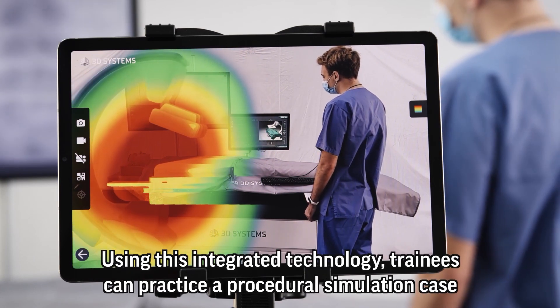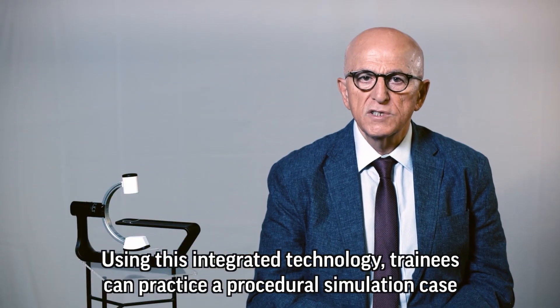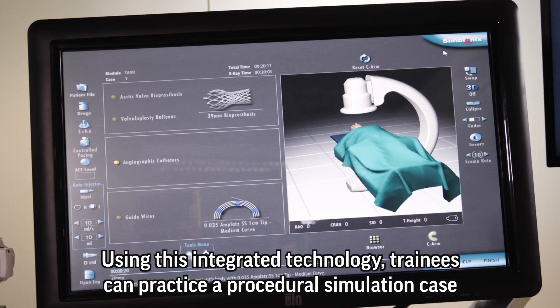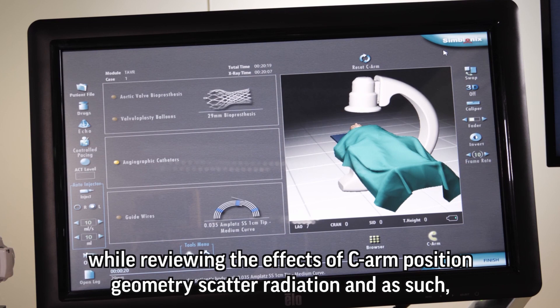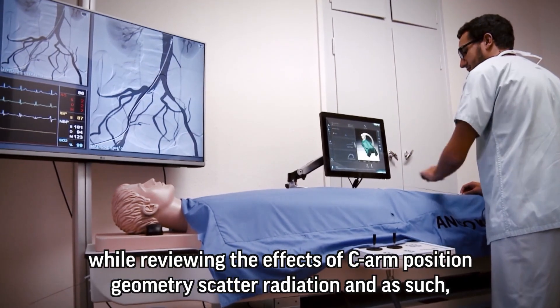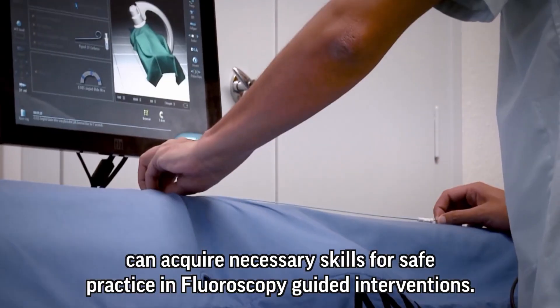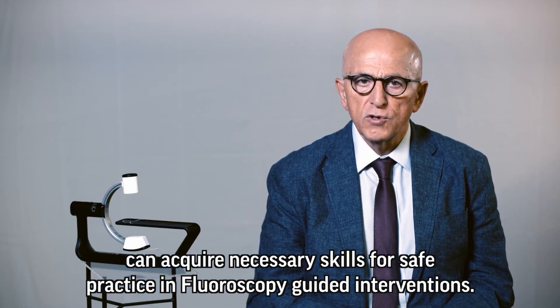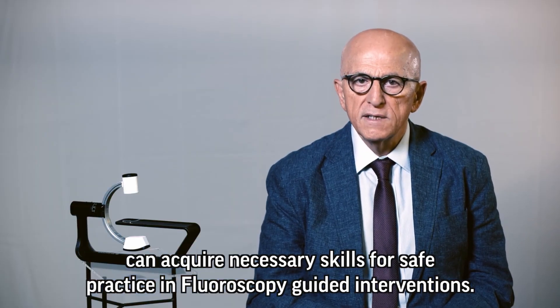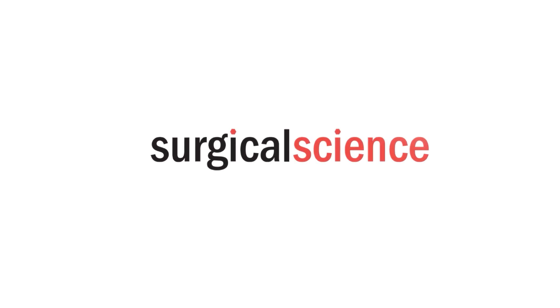Using the integrated technology, trainees can practice a procedural simulation case while reviewing the effects of C-arm position geometry and scatter radiation, and as such can acquire necessary skills for safe practice in fluoroscopy-guided interventions.